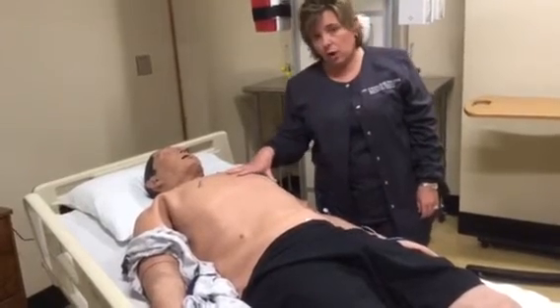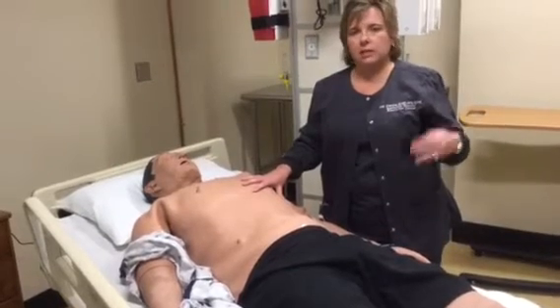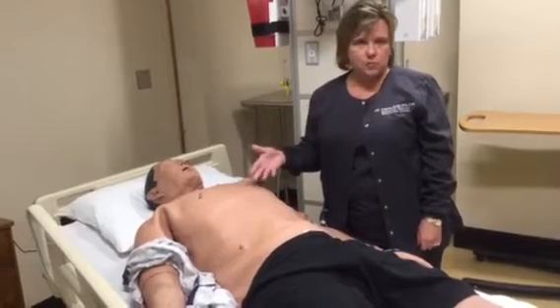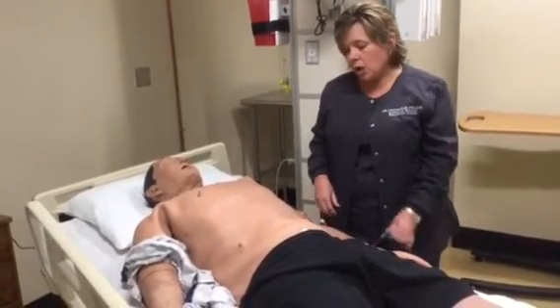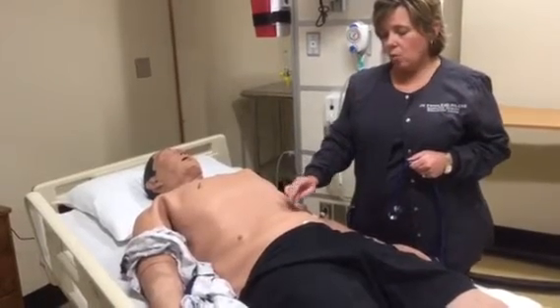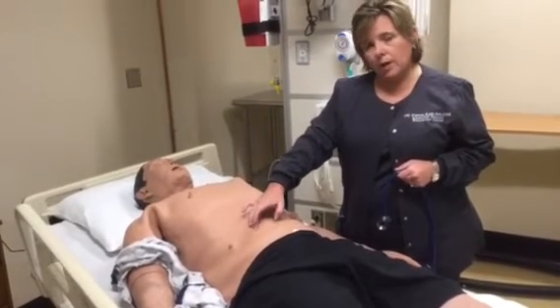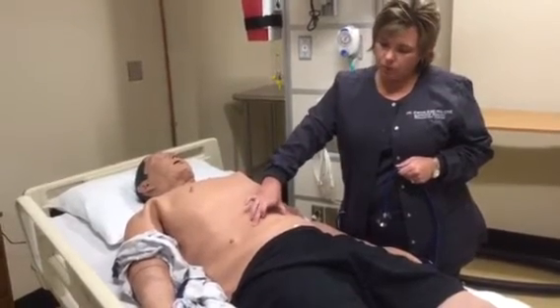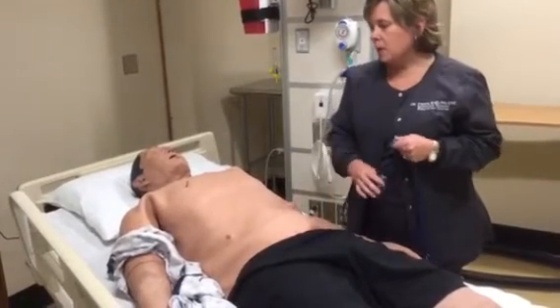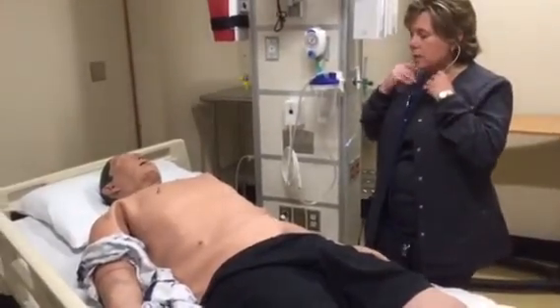They are controlled by volume, so if you can hear one better in one area, it doesn't necessarily mean anything physiologic with your patient. It's just how the speaker sounds through your stethoscope. Then your bowel sounds are, there are 4. They represent 1 in each quadrant, and they are directly out from the umbilicus about 2 inches. So your uppers are here, and your lowers are in this area. So you'll want to make sure that you have your stethoscope over one of those speakers.